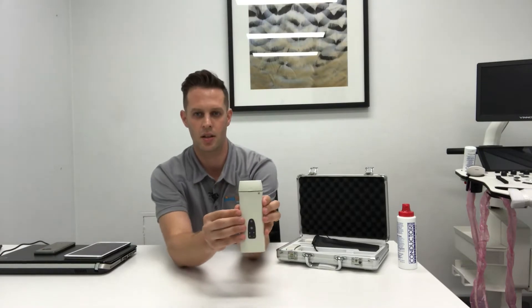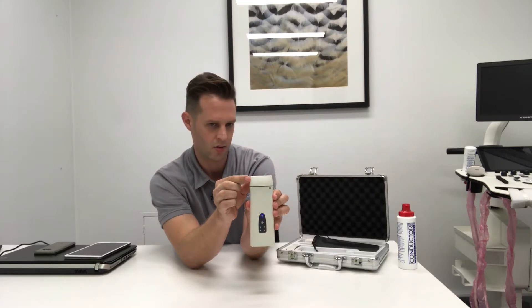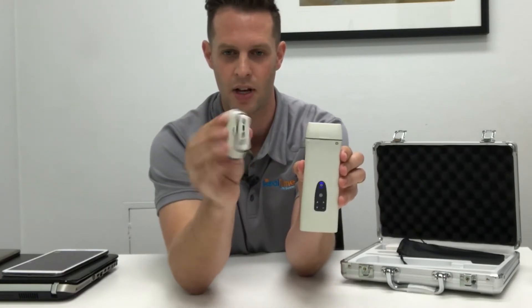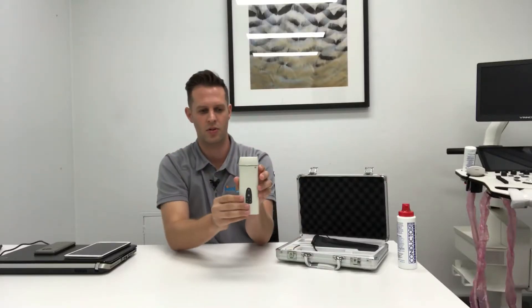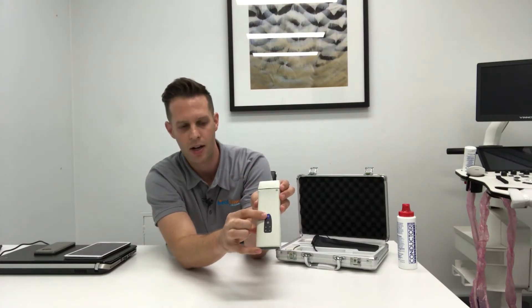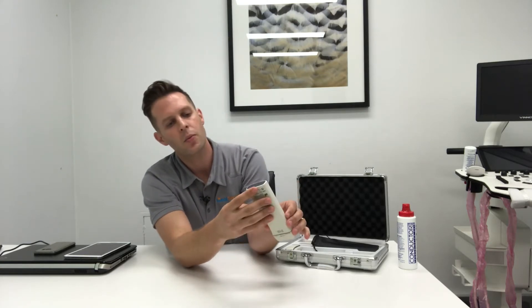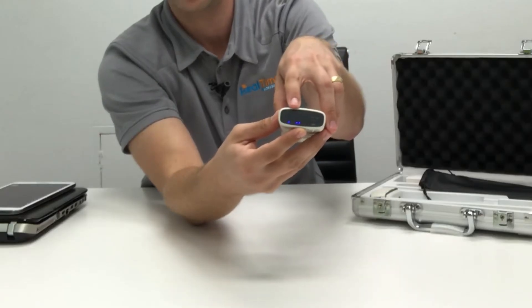Taking a quick look at the unit, it has interchangeable probe heads or transducer heads. This one has the linear on at the moment and you simply freeze the unit and you can pop these on and off. There's a convex one, endo cavity heads, micro convex heads — all different transducers for different applications. On the front you've got your power button and buttons to change your imaging parameters while scanning.